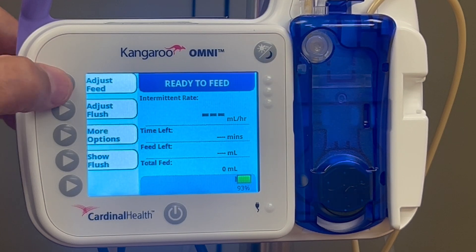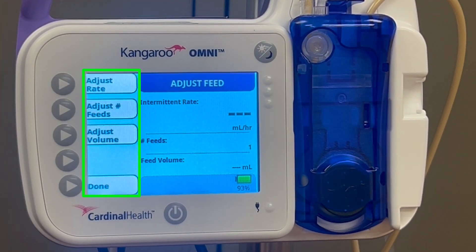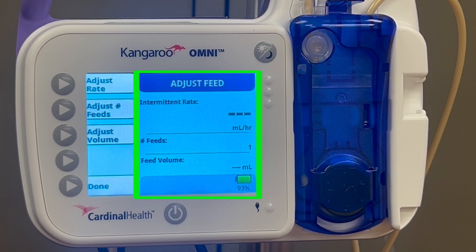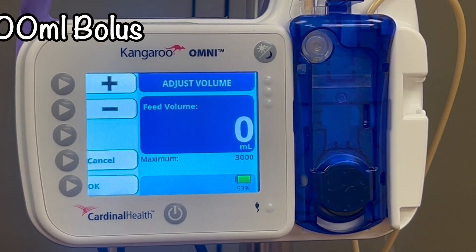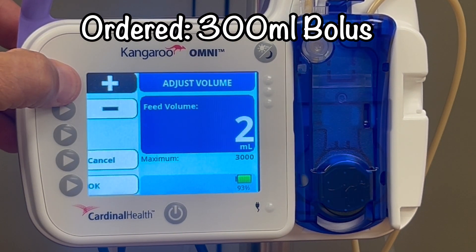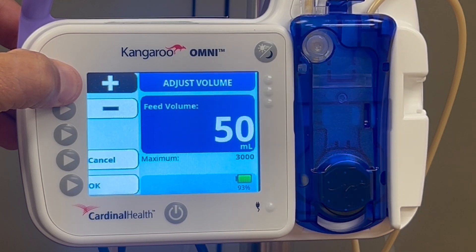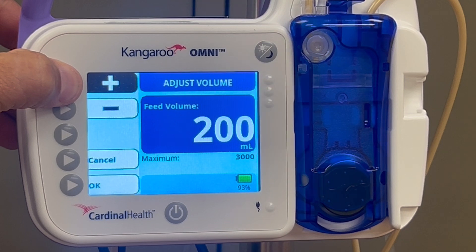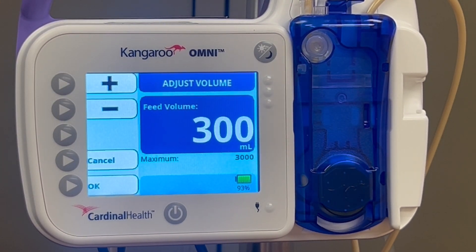Push Adjust Feed — this is where we'll input our order information. On the left are your options for programming, and on the right is your information on the current program. Let's start with Adjust Volume. We said our order was to deliver 300 milliliters per bolus. Enter that volume here using the arrows. Tapping plus or minus will increase or decrease the value by one; holding down either button will change the value more rapidly. Push OK when you've dialed in the correct amount.